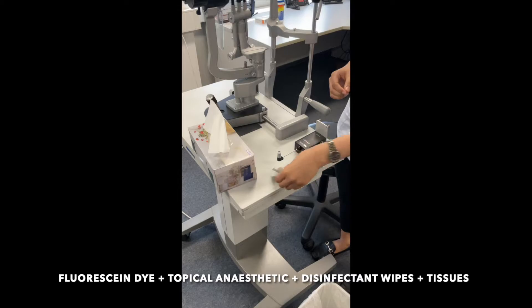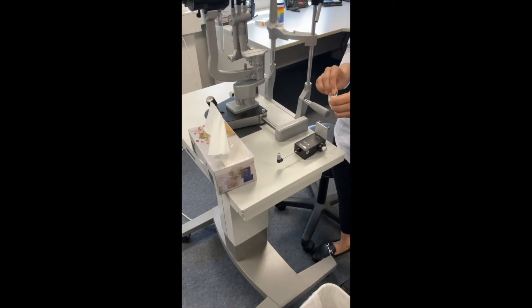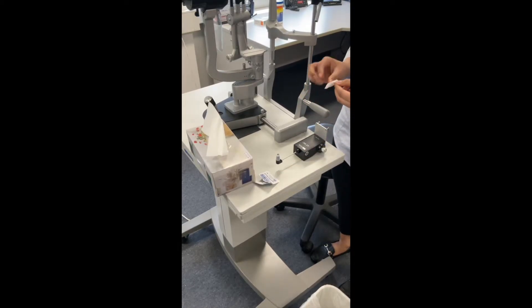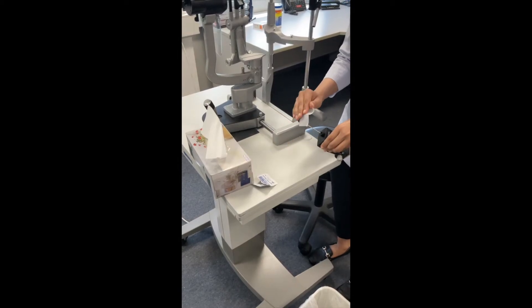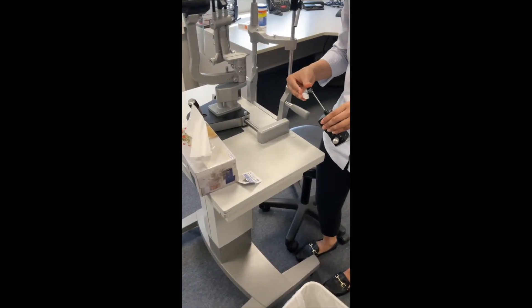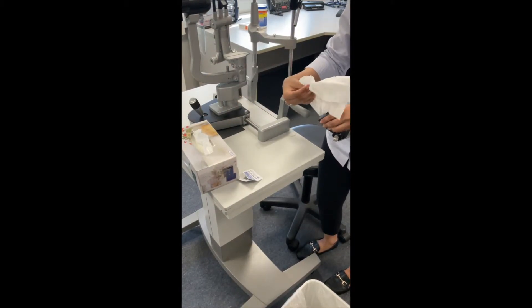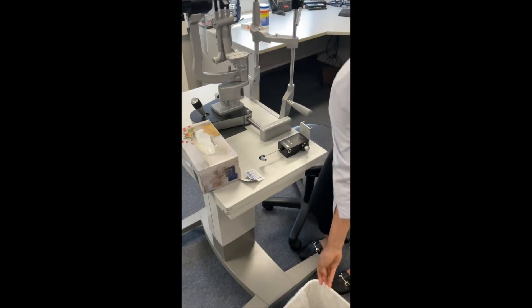There are a few necessary preparations required to carry out prior to performing Goldman Applanation Tonometry. First and foremost, it is crucial for the prism to be disinfected with isopropyl alcohol 70%, as the prism will come in direct contact with the cornea. Please make sure that there is no residue left on the prism by using a tissue, as it can potentially burn the cornea.